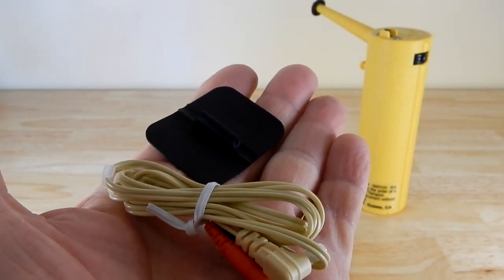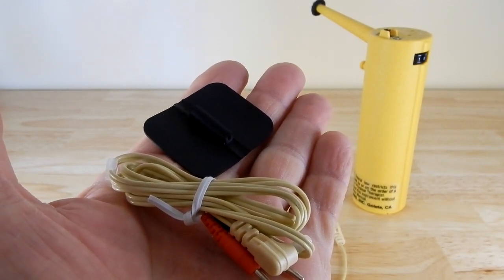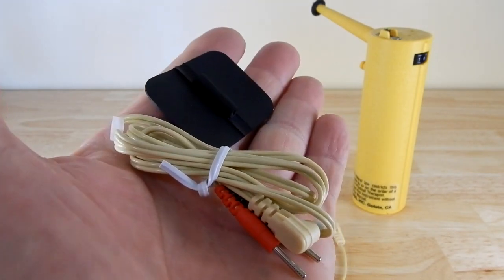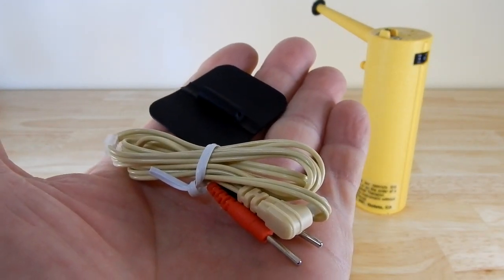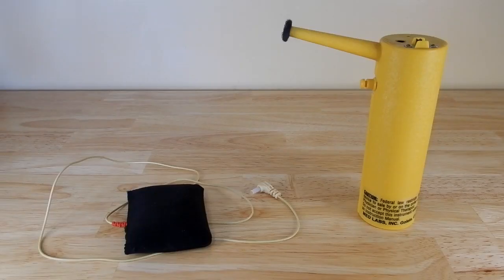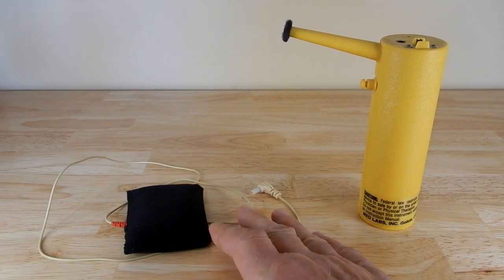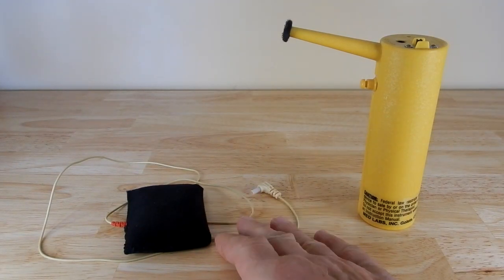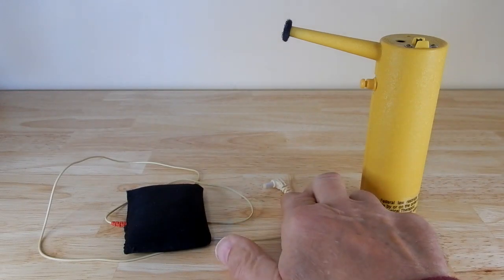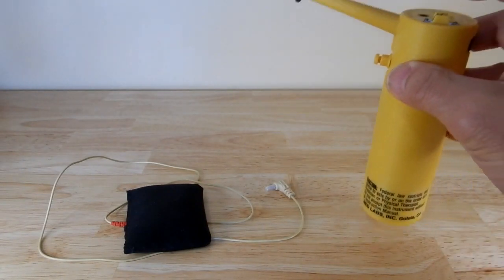If you are going to use this rubber electrode, it has to be used with either conductive gel or water soaked underneath the pads. This is not what I use, so I don't have experience with it. What I do have experience using is the dispersive pad, which is water-soaked, and the end here is what you plug into the same port on top of the unit.